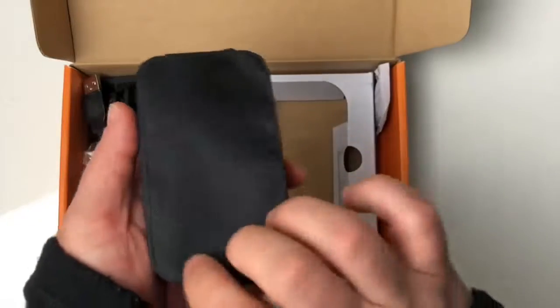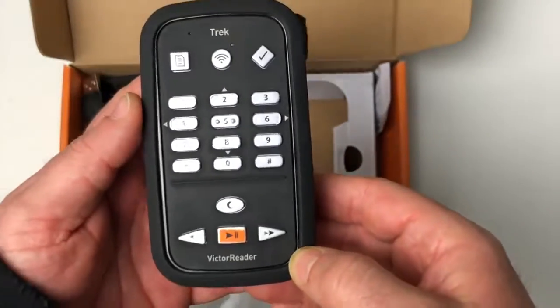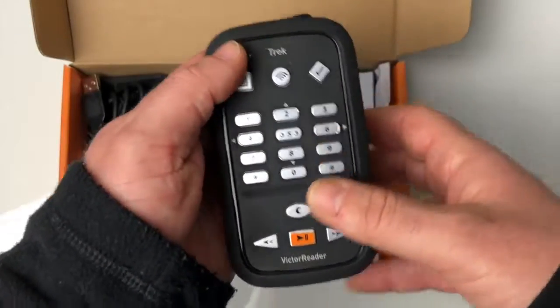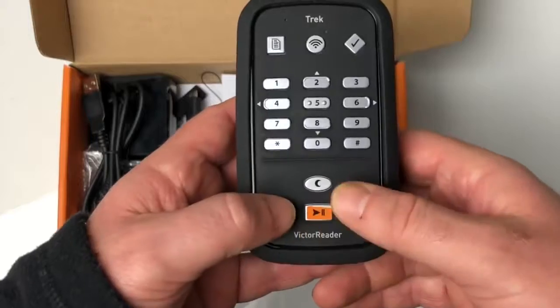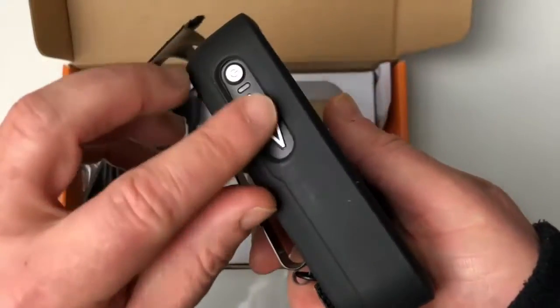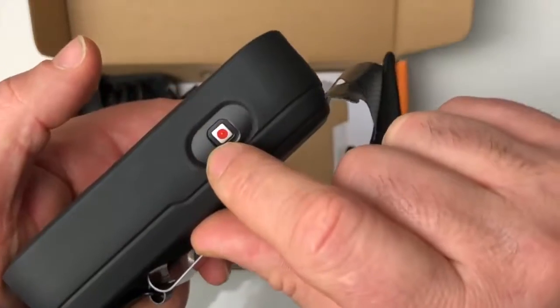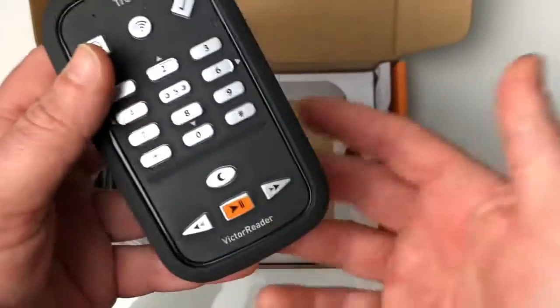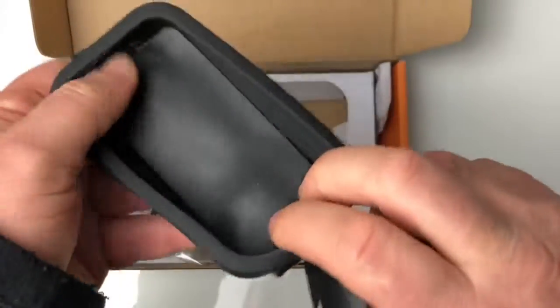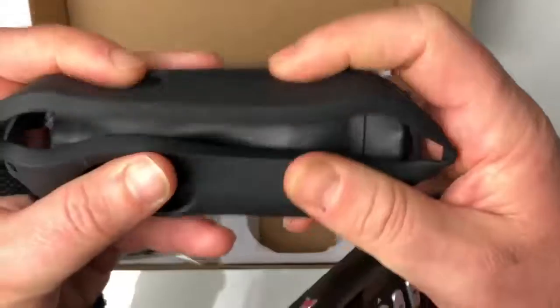Si on ouvre le côté aimanté, on tombe instantanément sur l'appareil. En très gros sur l'écran : côté design, c'est une copie conforme du Victor Reader Stream, avec un pavé numérique, la touche carré Play/Pause, une flèche à droite, une flèche à gauche, et le petit ovale qui permet de donner l'heure. C'est typiquement un Victor Reader Stream. Les boutons de volume à gauche, le bouton marche/arrêt et le bouton pour lancer le dictaphone sur le côté droit. La coque qui l'entoure est une coque très souple qui protège parfaitement l'appareil.